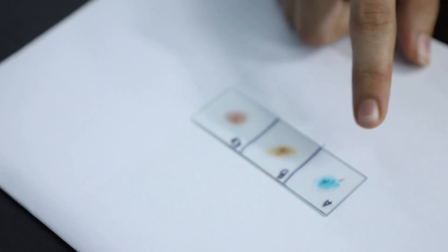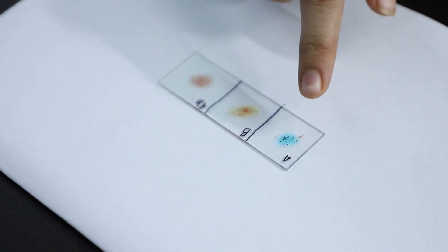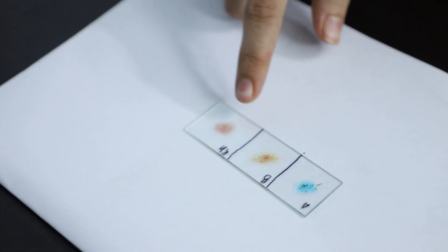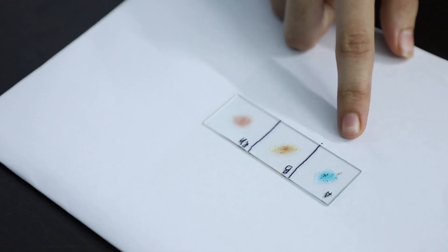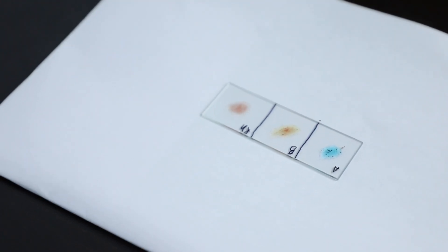As we can see, agglutination occurred in A and B and did not occur in RH. So we get to know that my blood group is AB negative.